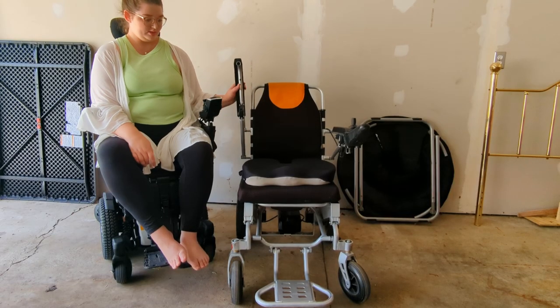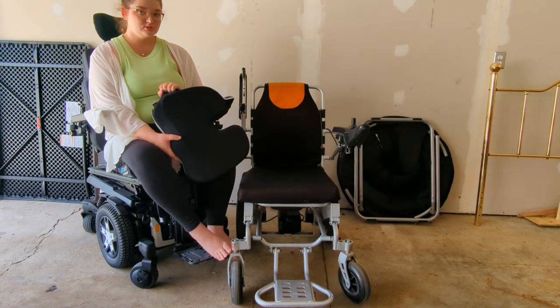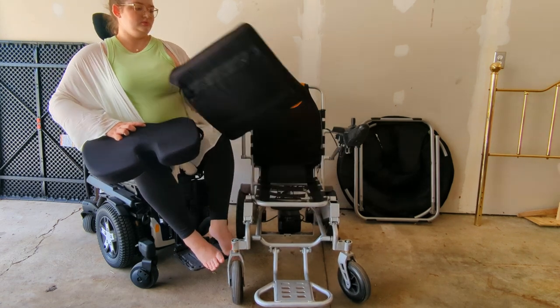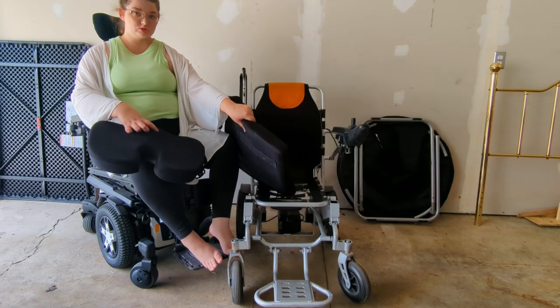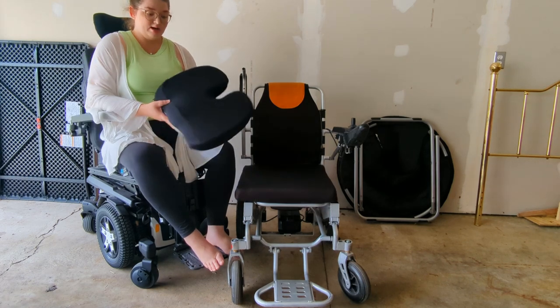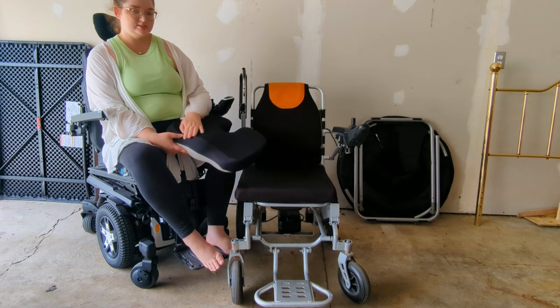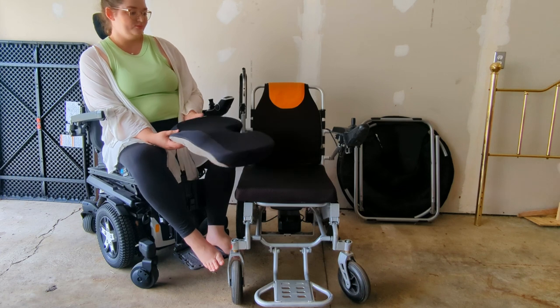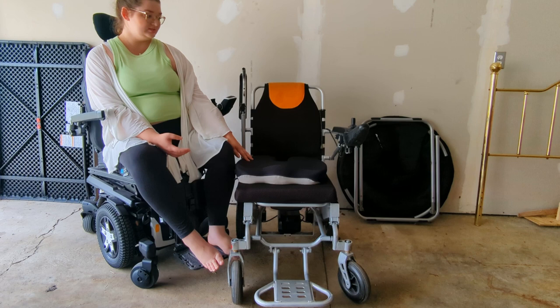The first thing I want to point out is this extra cushion. I used to just sit on this chair with the stock cushion — the cushions are fully removable because it is a travel chair, and it's a very small, basic foam cushion, so it's not very comfortable. My lovely mother got me this cushion — it's nicely contoured, much thicker, much higher quality and higher density foam. I always use this now when I'm sitting in this chair for longer periods of time, and it's been great.